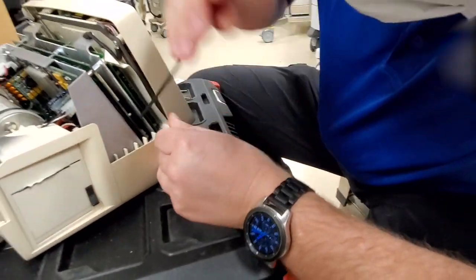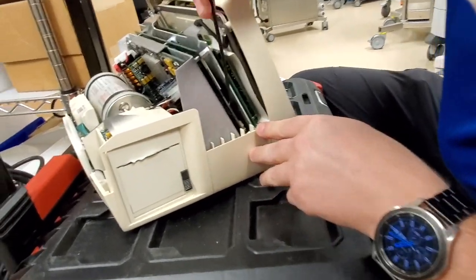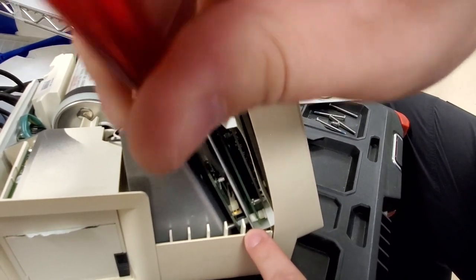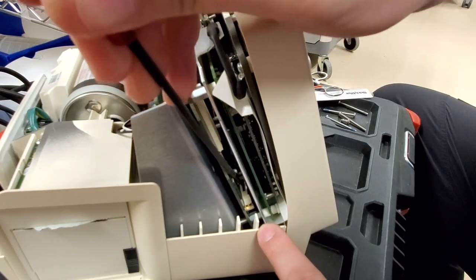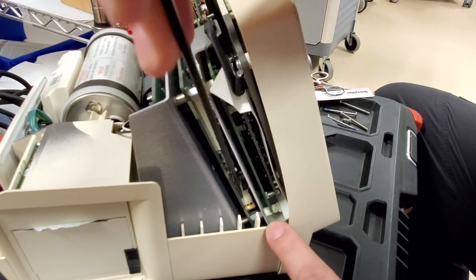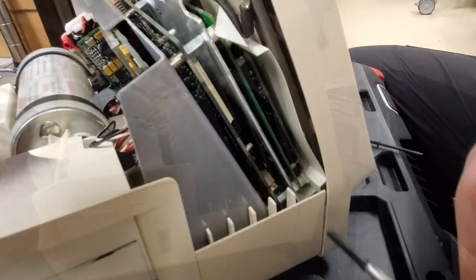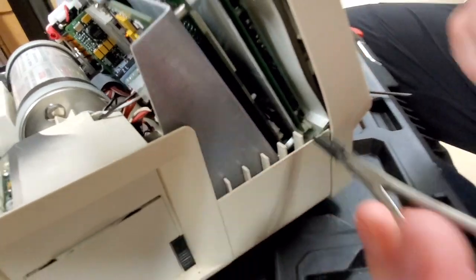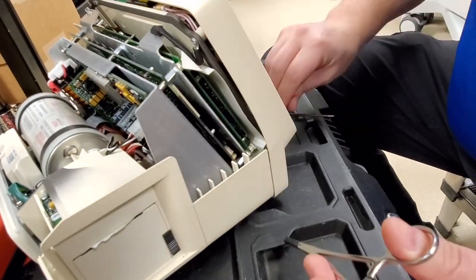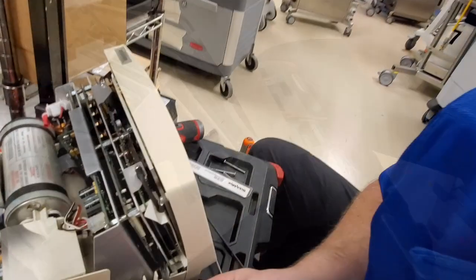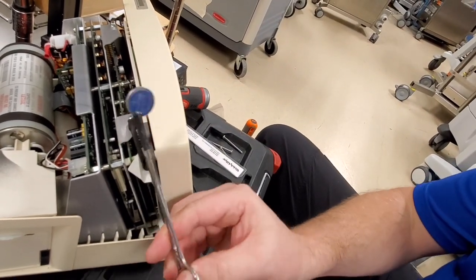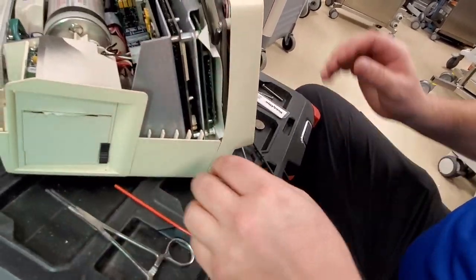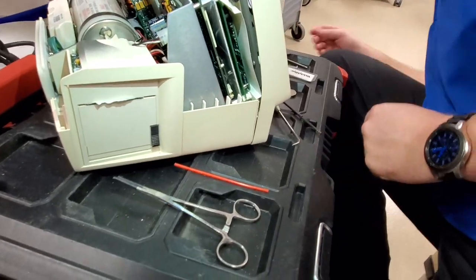So the first thing I am going to do is I'm going to stick my flat blade screwdriver in there and I'm going to pop that coin cell out. You got to get between the plastic case and the coin itself and just kind of rotate the flat blade and it pops right up just like that. So now I'm going to reach in there with these forceps and I'm going to grab this coin. Now I grab onto it with the forceps and pull it out. Alright. So that's that. Let's get the new coin.